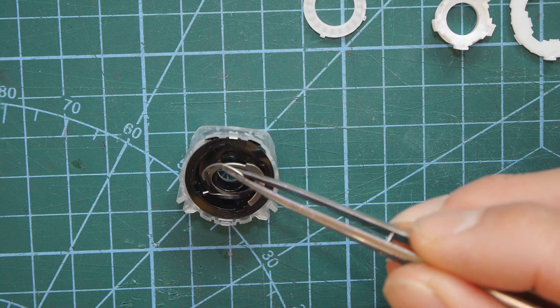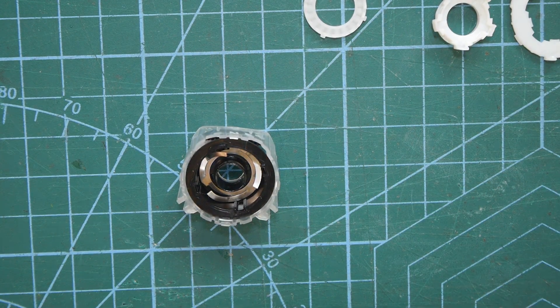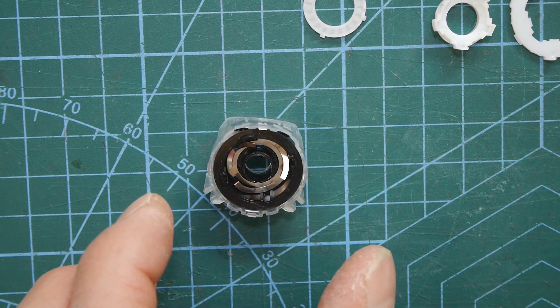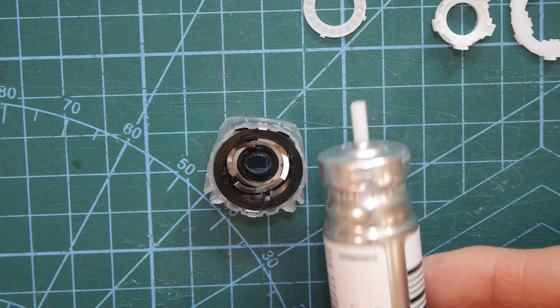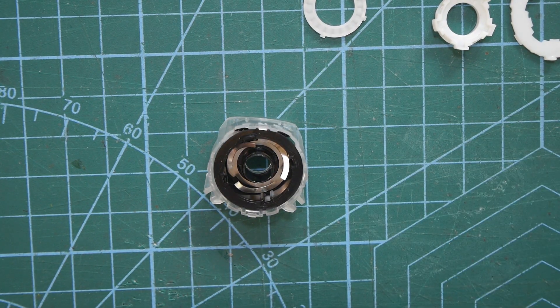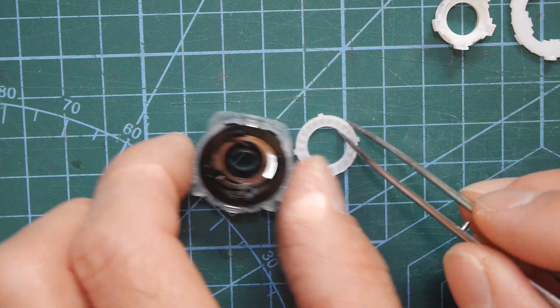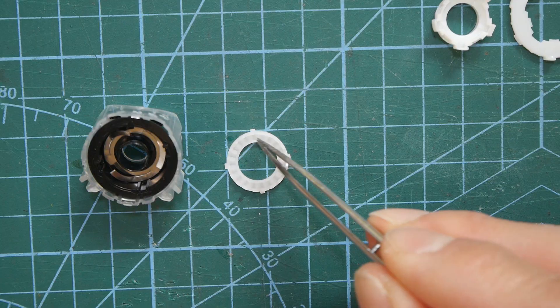And then we've got the spring and the spring is only really to give it a little bit of feel and to make sure that you're not holding the actual can in for too long when you're having a puff from the inhaler.